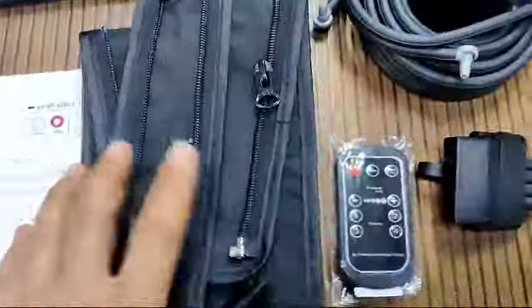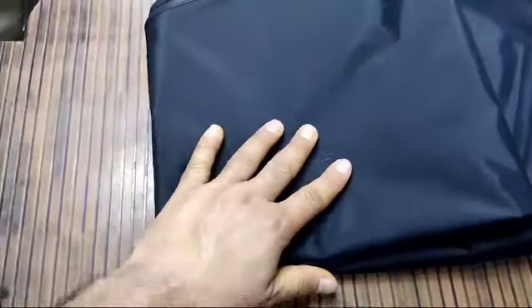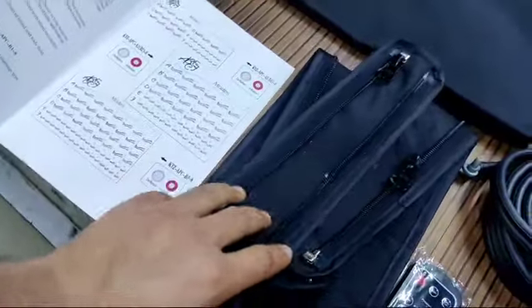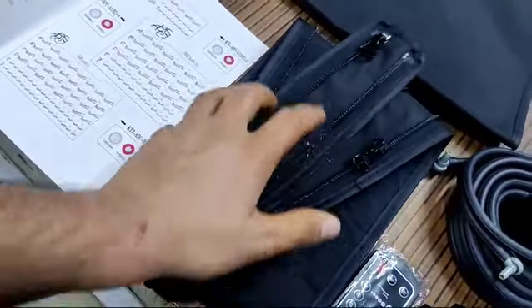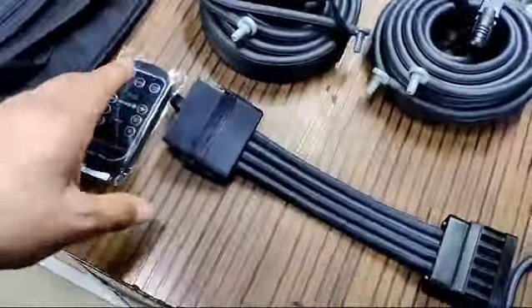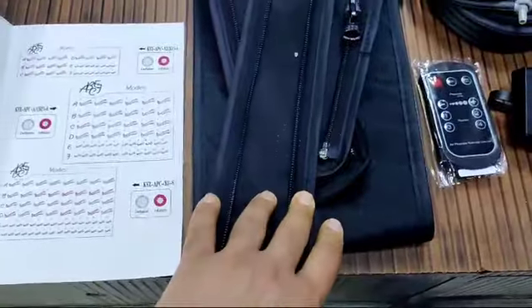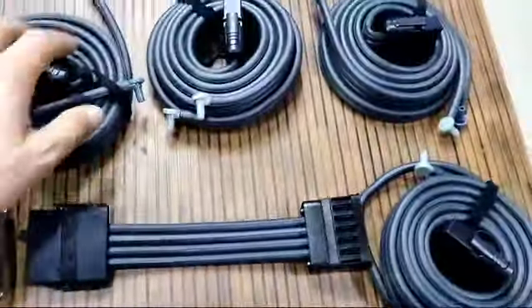These are the leg sleeves — two leg sleeves are provided. If the leg is larger than the cuff size, you can use the complementary leg extension to get an extended fit for bigger legs. Other models in the market don't provide this. We also offer six modes, whereas others offer only three.